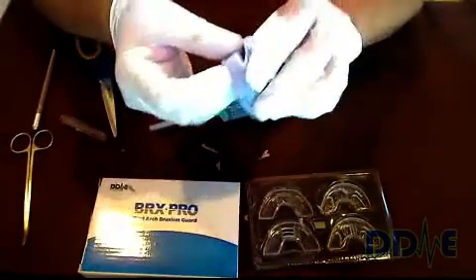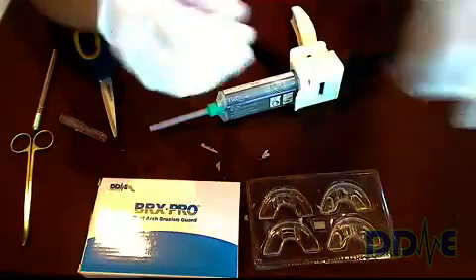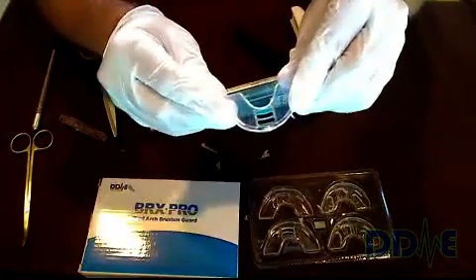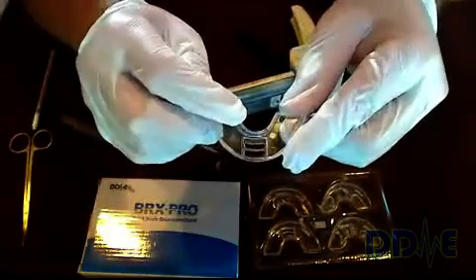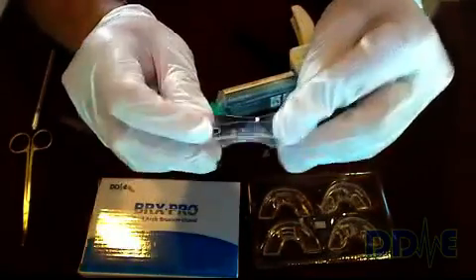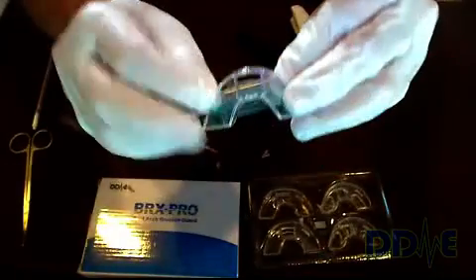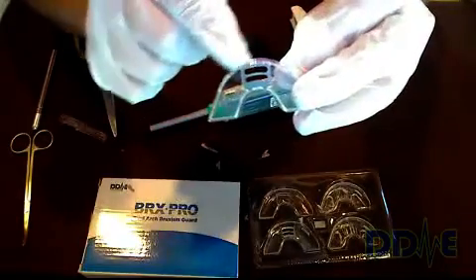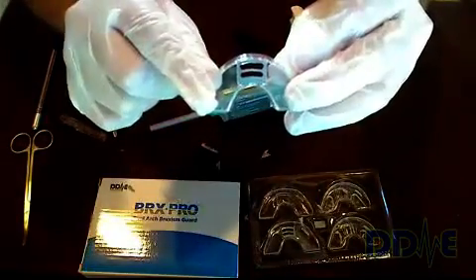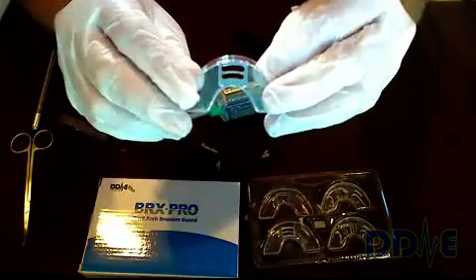These get placed into the therapy trays. The lower therapy tray has a stainless steel grate embedded in the base. You'll notice there are two slots — that's part of the adjustment mechanism. The slots allow quite a bit of movement of the pin, and that mandibular movement makes the appliance pretty comfortable.